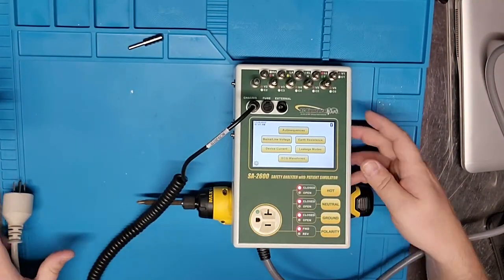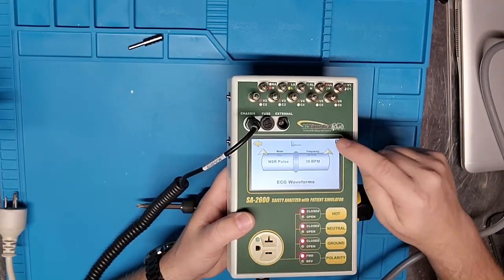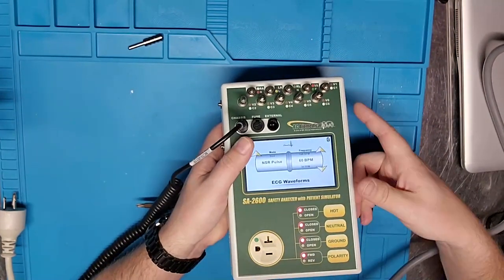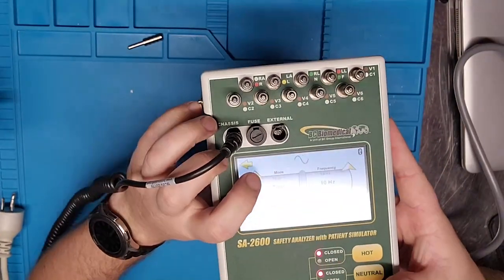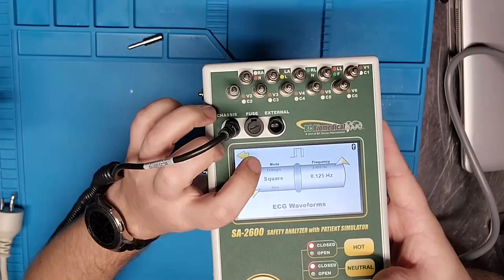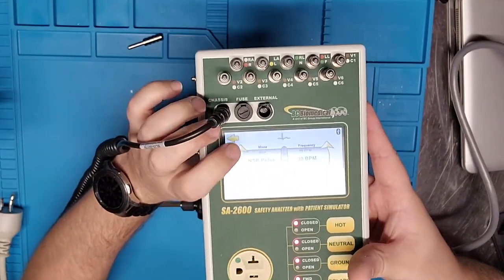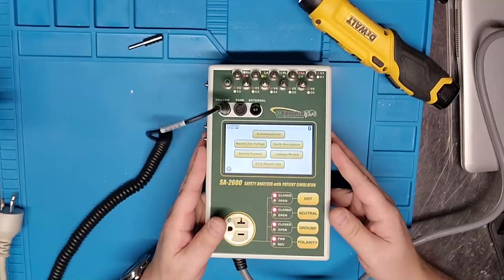Another cool feature is ECG waveforms. There's a little animation showing what you're selecting — normal sinus rhythm at 30 BPM, which I can change to 60 BPM. Using the up and down arrows I can flip through: sine wave — the animation in the corner changes as I select — square wave, which is useful for troubleshooting circuits and testing ECG machines and printers, and triangle wave. Very cool.